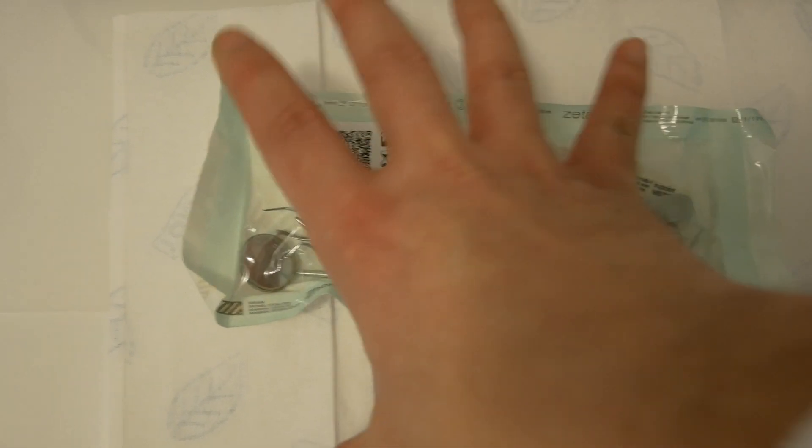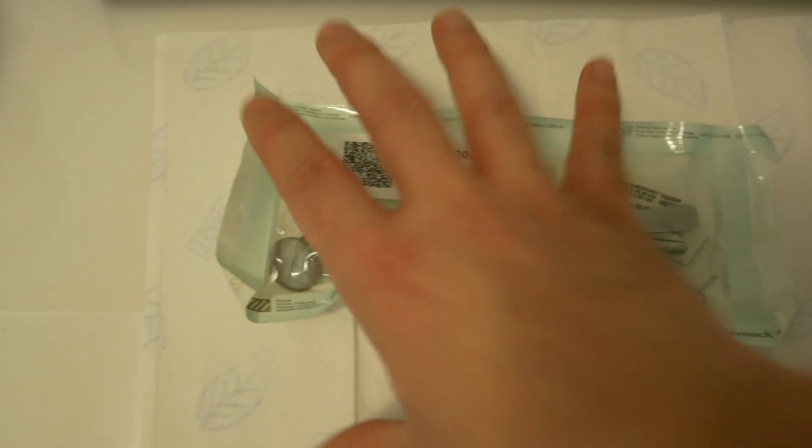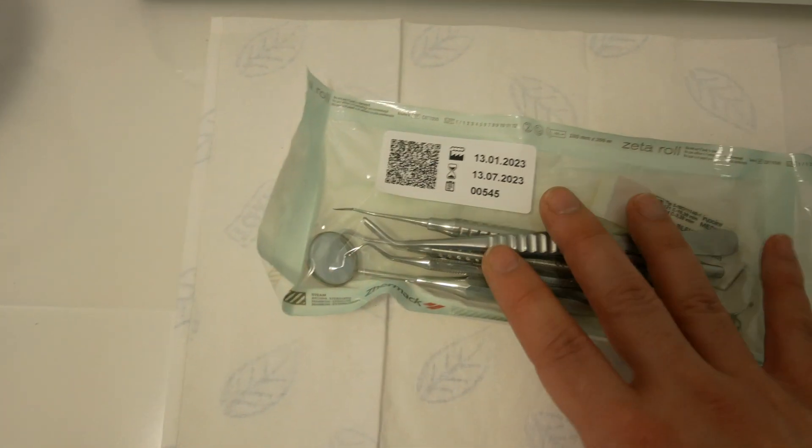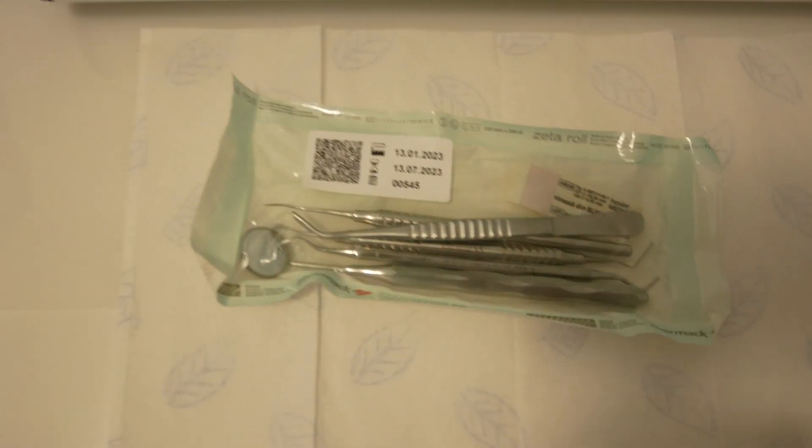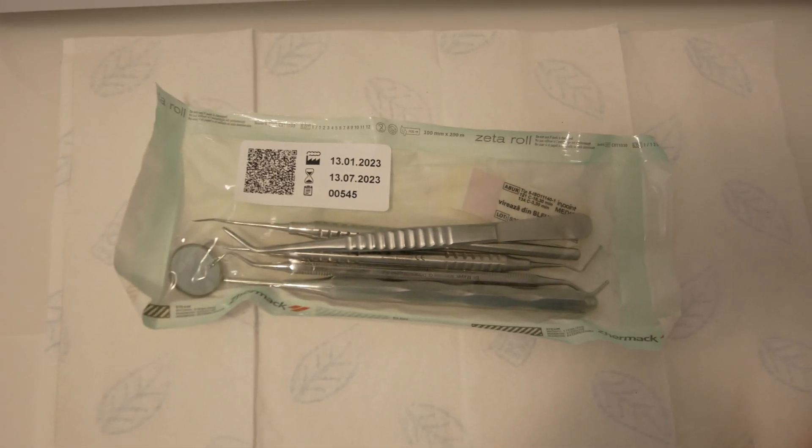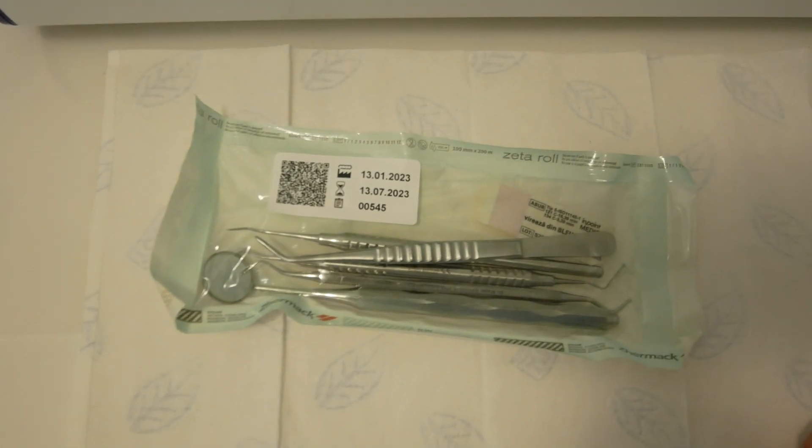These informations are mandatory in order to identify each bag individually and see the information about the sterilization cycle and all the history and traceability of the instruments.